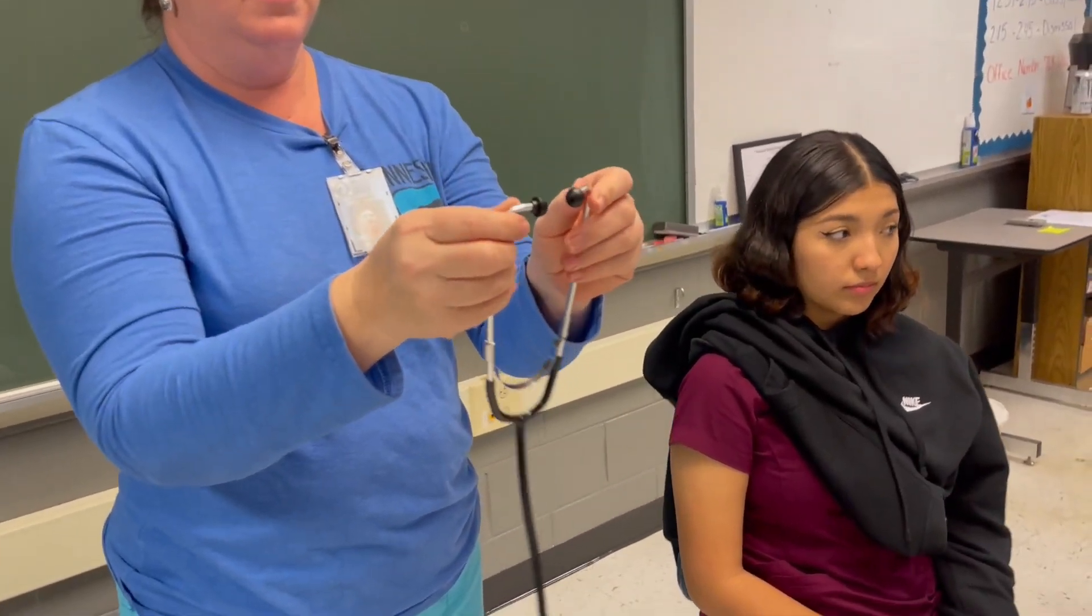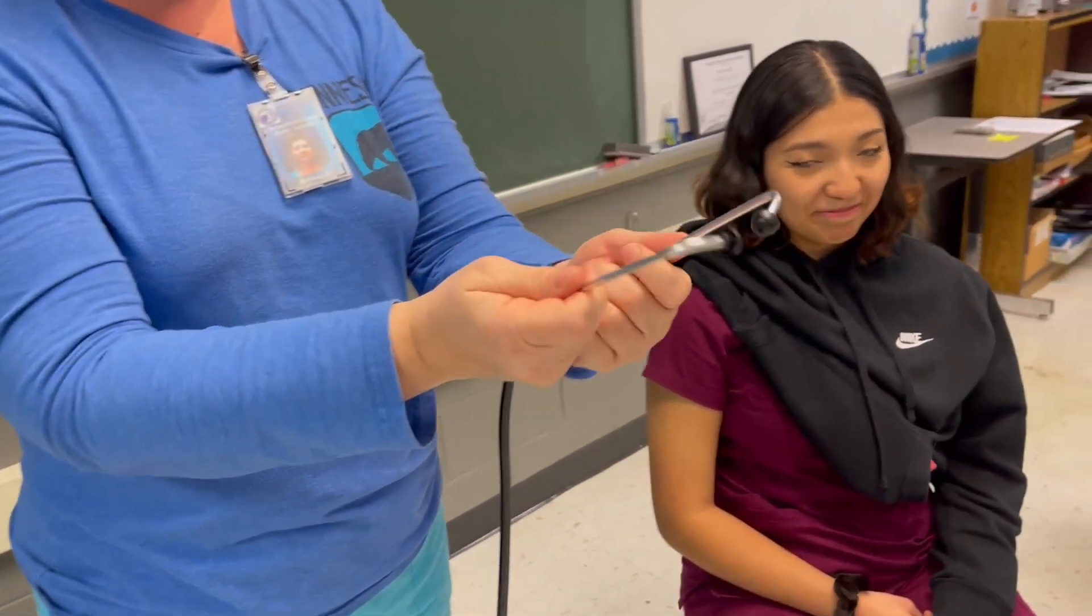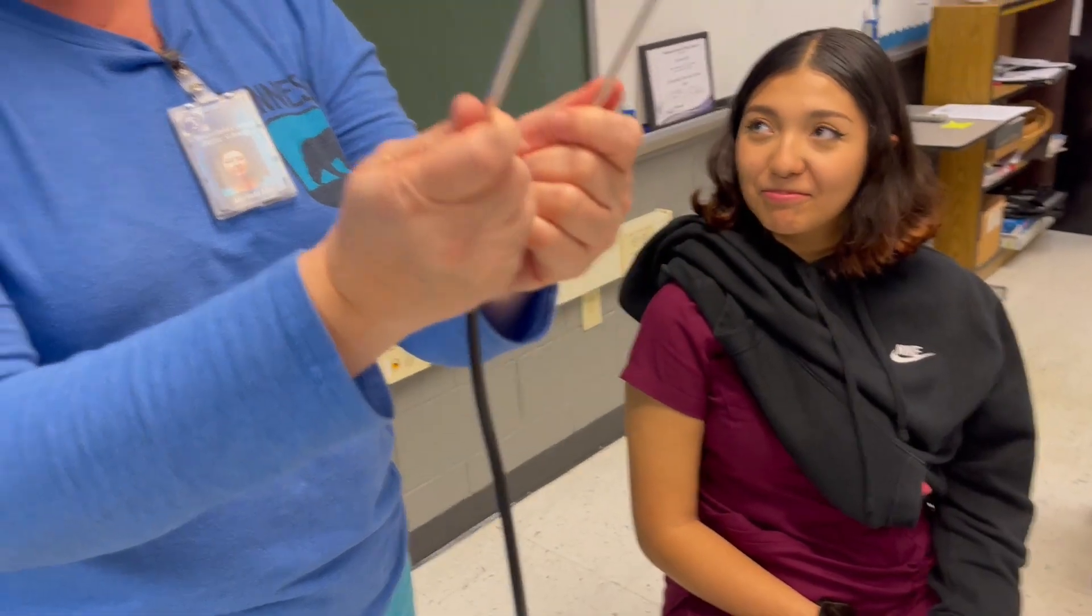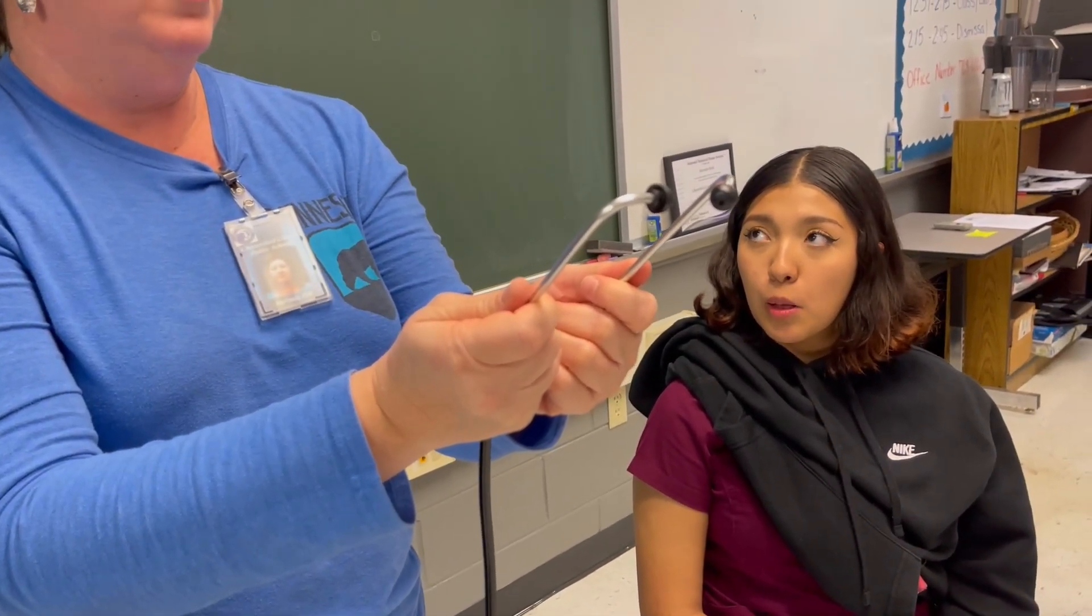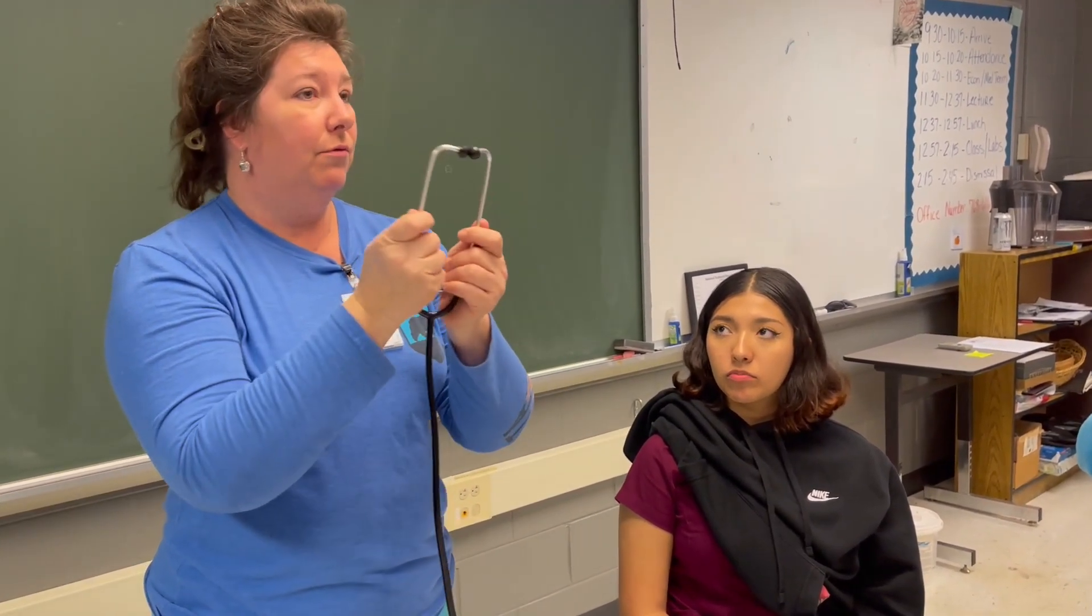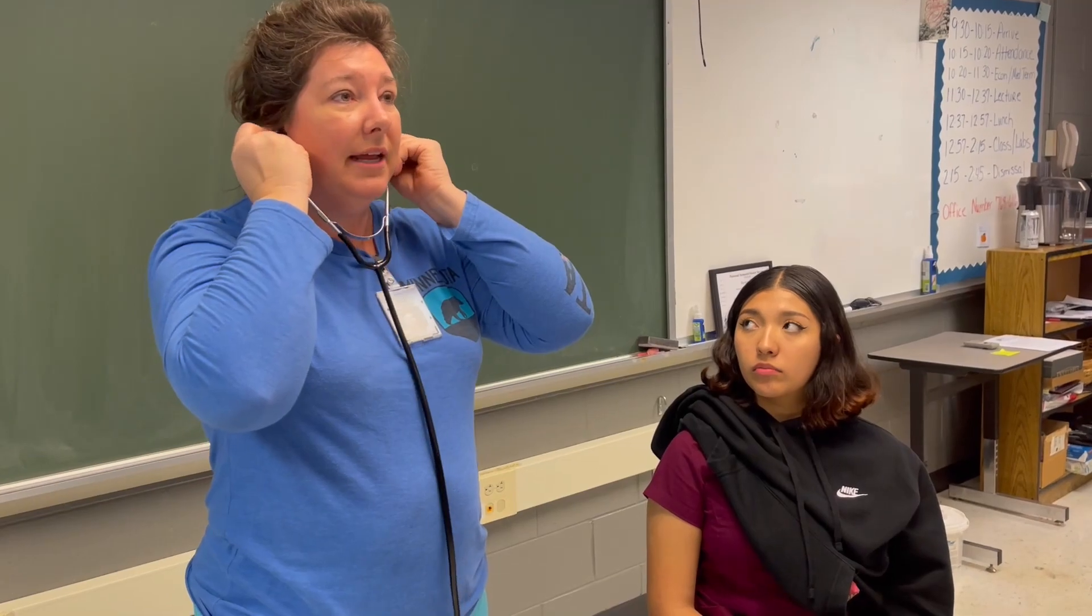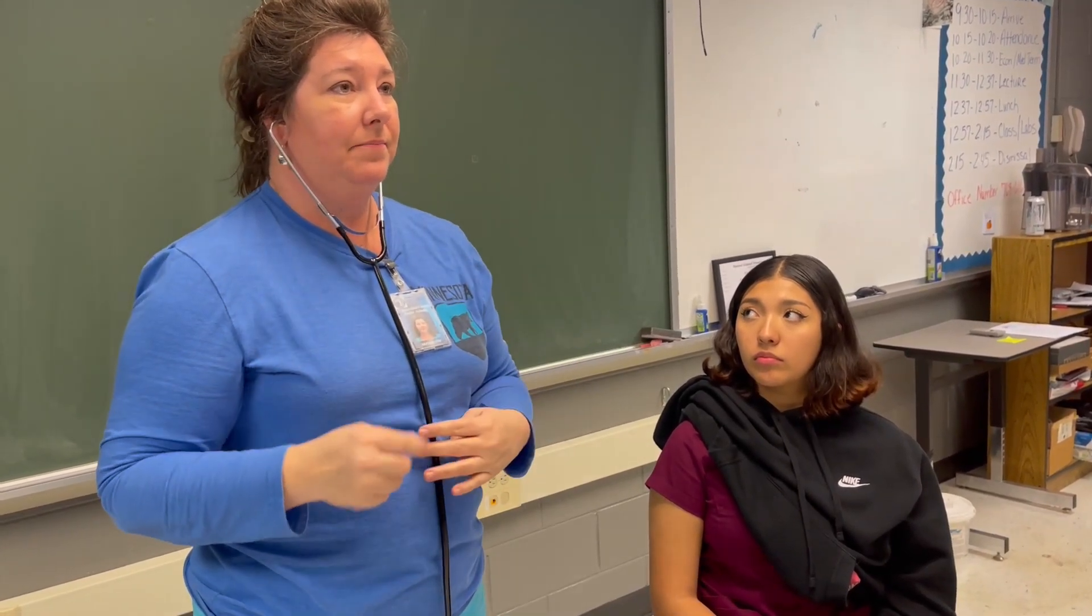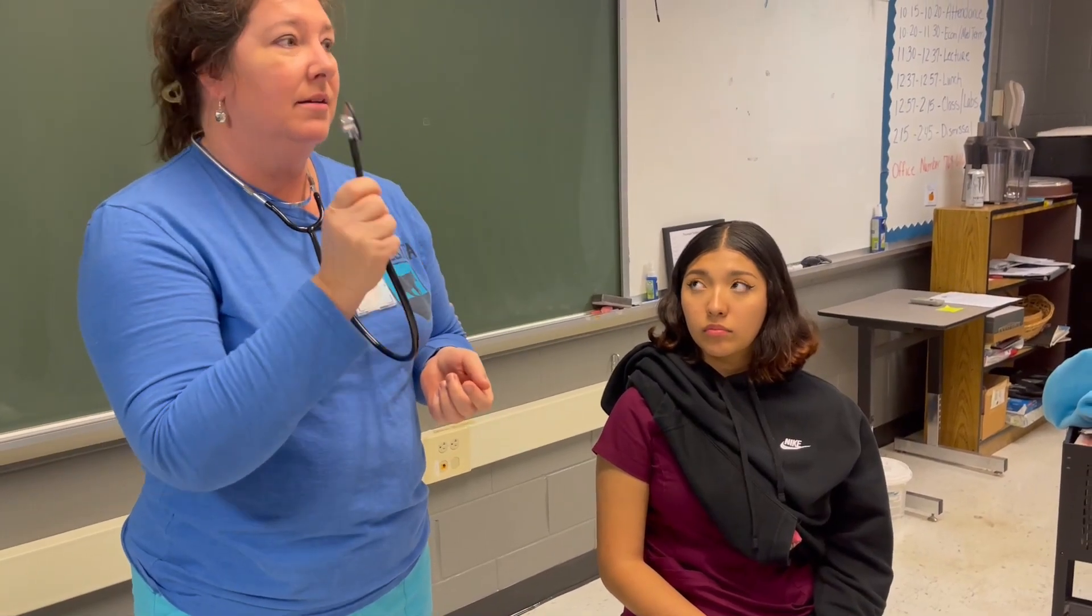Now, this is your stethoscope, and these ear parts, I saw you guys putting them in earlier the wrong way. Your ear canal actually goes forward, so these need to go forward in your ears, like this. Now, the other thing is, you have to be careful. No playing around with this, going like that while somebody has it in their ear. You can rupture someone's eardrum.